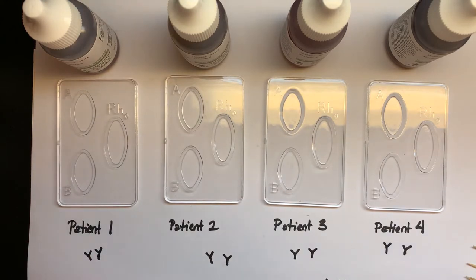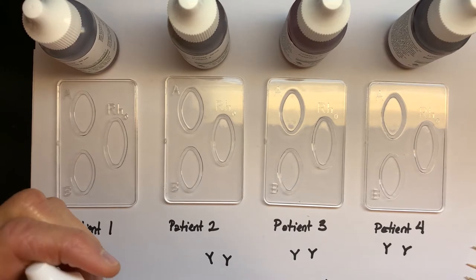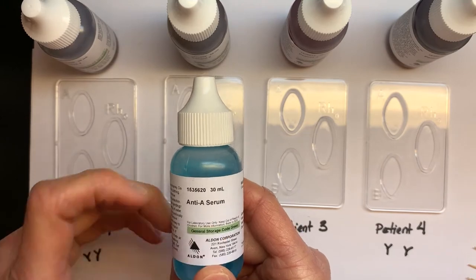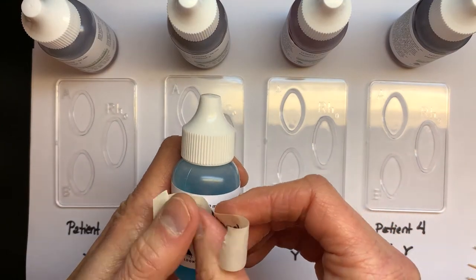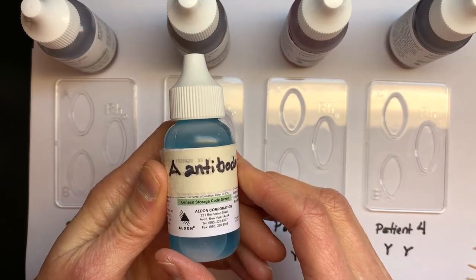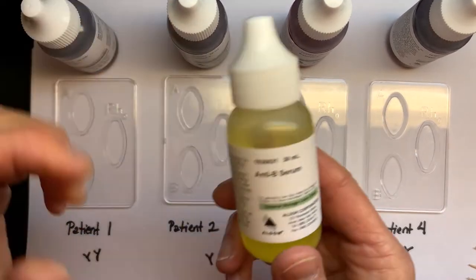We need to look at the bottles which contain the antibodies. There's an antibody for A, one for B, and one against RH — the rhesus antigen or factor. These bottles are labeled as anti-A serum. I'm going to make it easier to recall and relabel it as 'A antibodies,' which helps you remember that this bottle contains A antibodies.